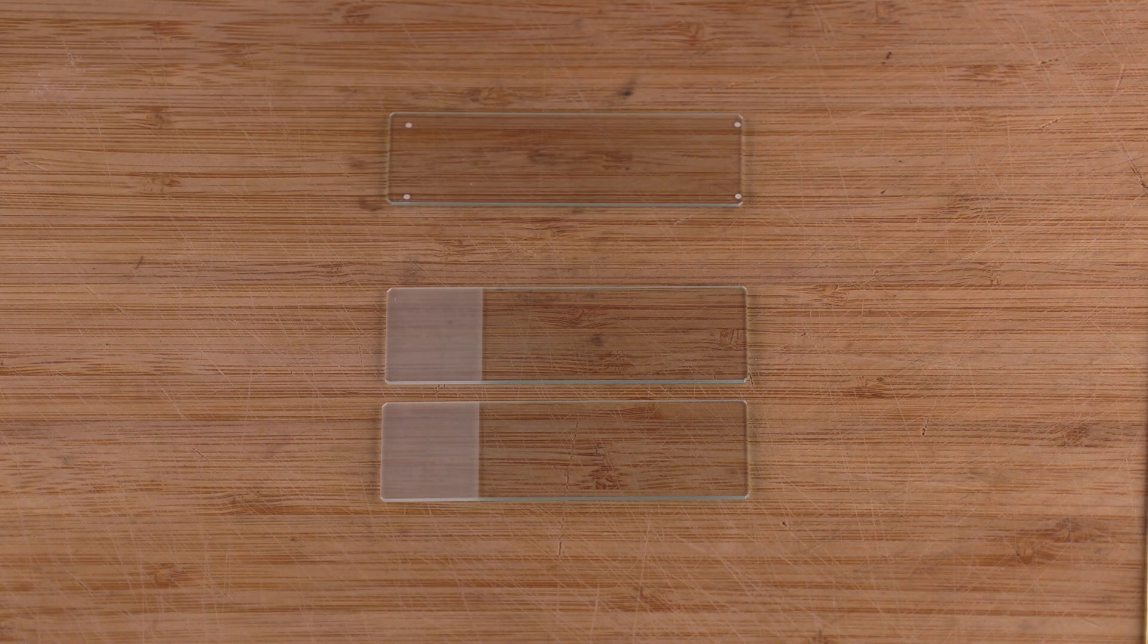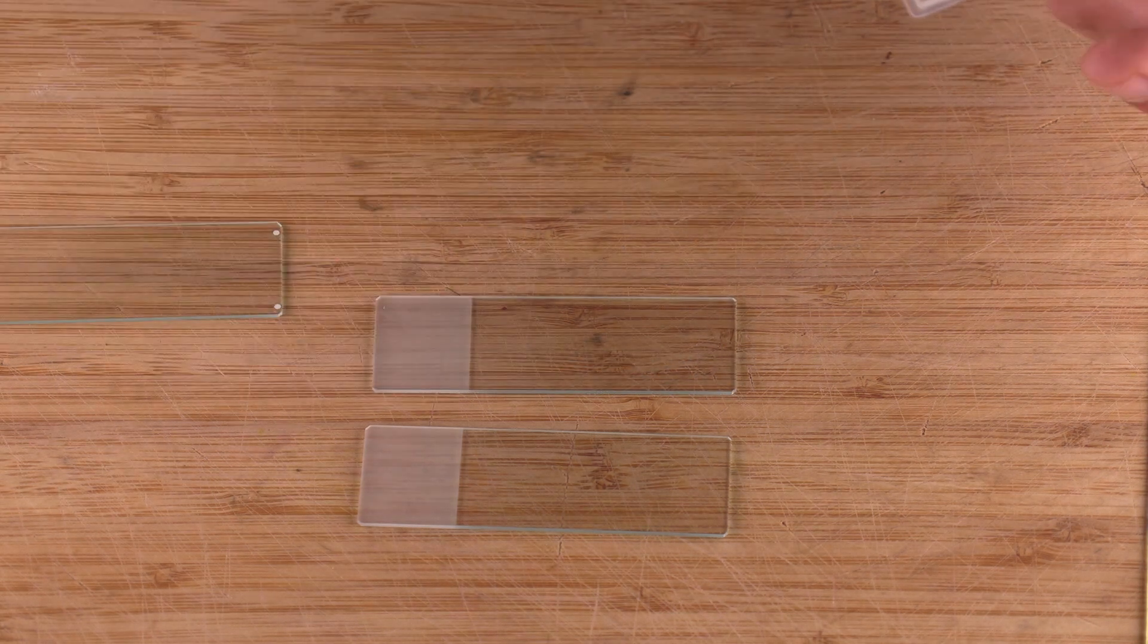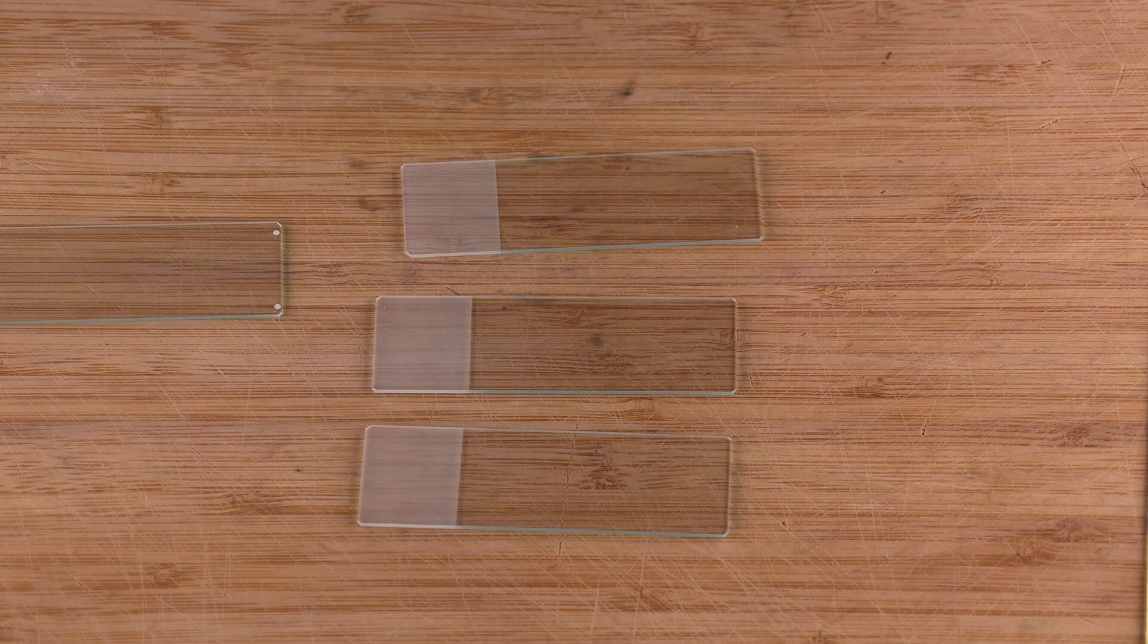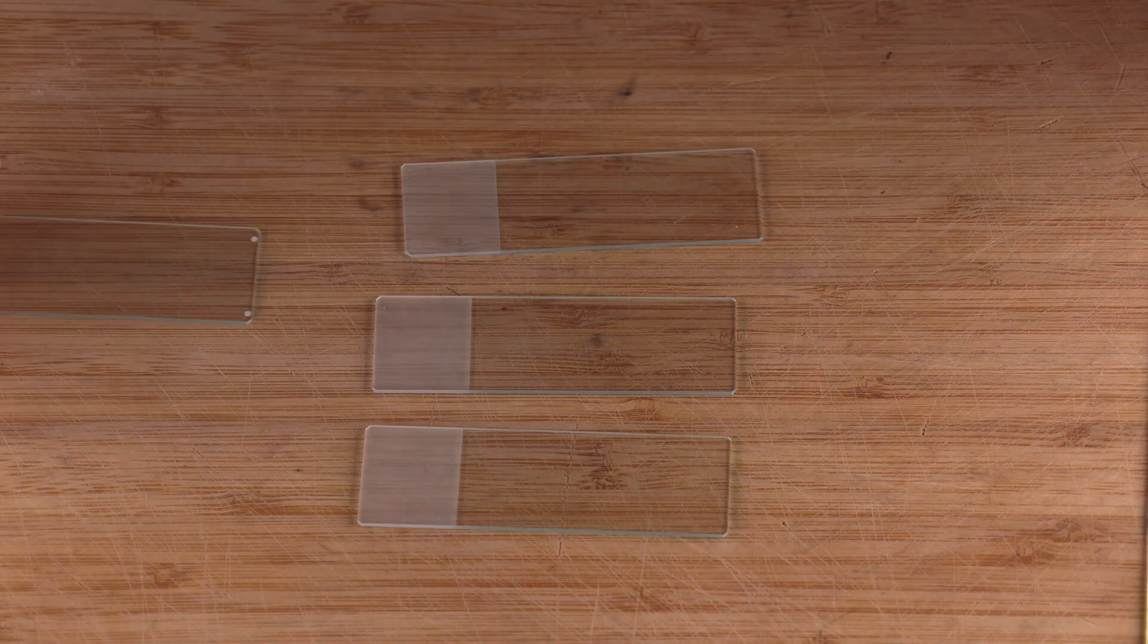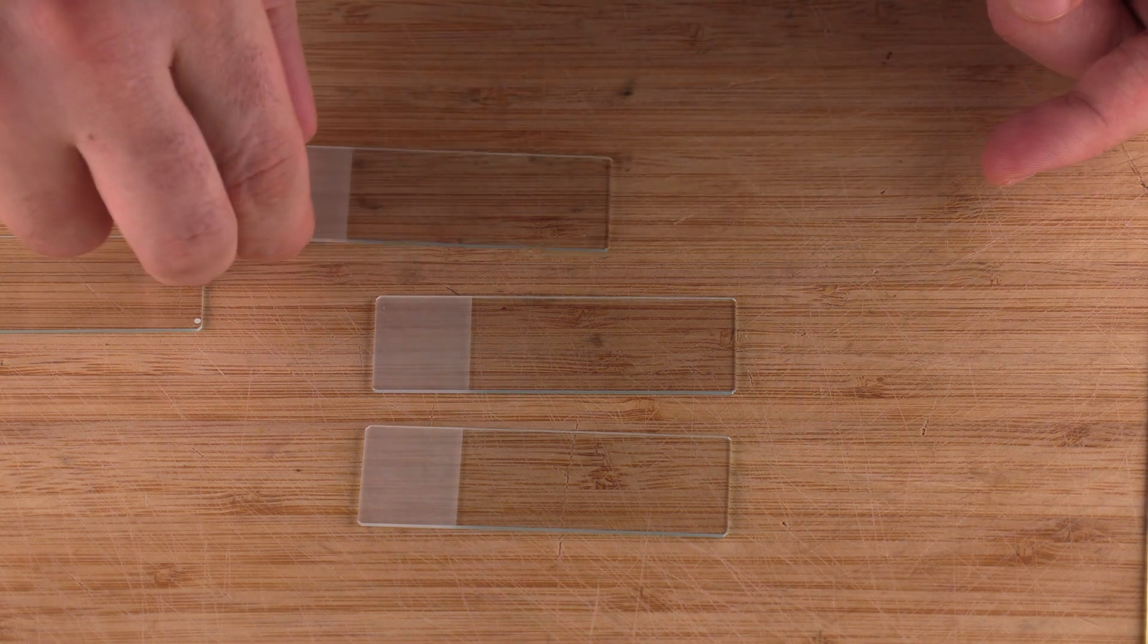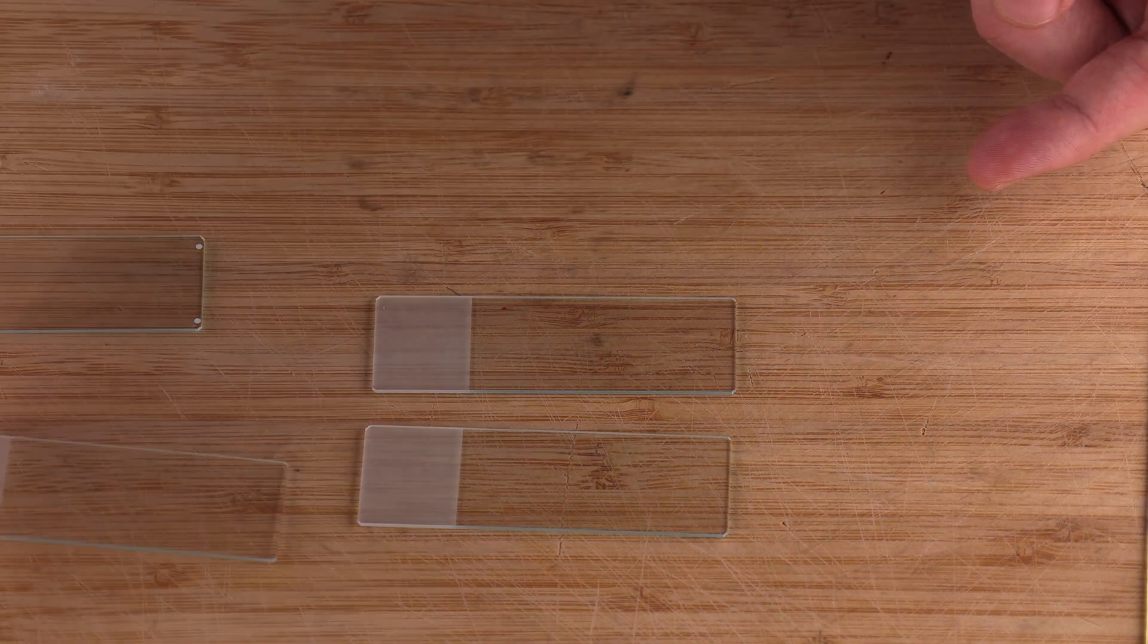I'm going to demonstrate how to make that film in the next part of the video. When holding the slides you want to pinch it from the edges and pinch more towards the frosted part of the slide and just be real gentle with them. You never want to touch the broad flat side of it. Touching the broad side of the slide with your fingers will contaminate the slide and could affect the test results.